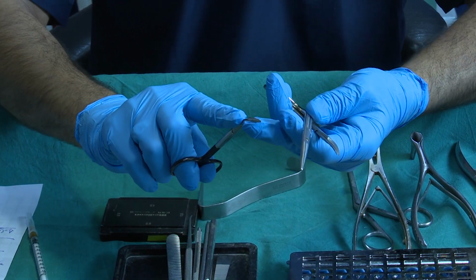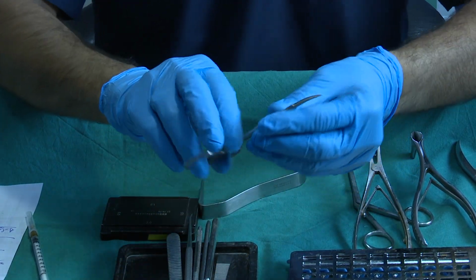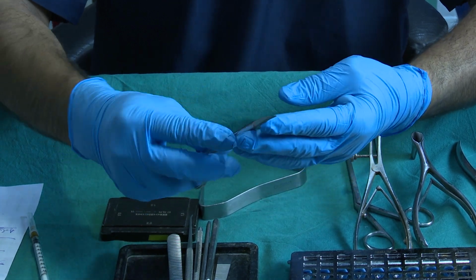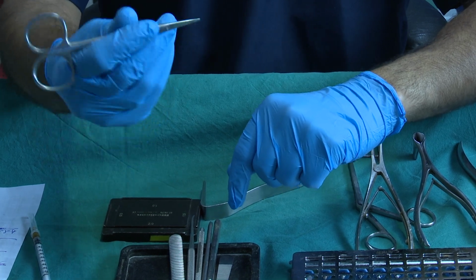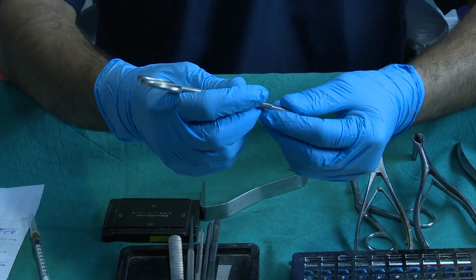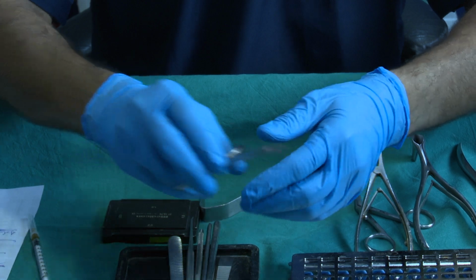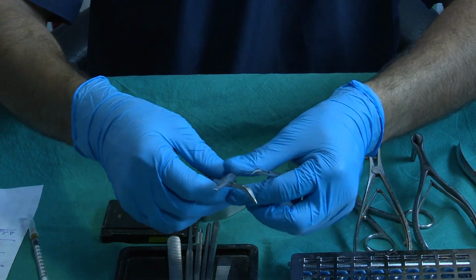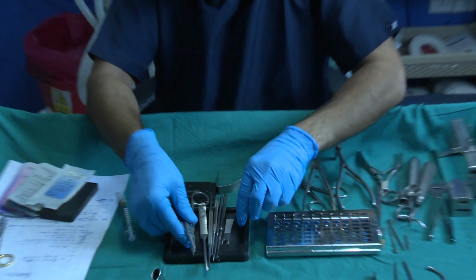When you dissect at an angle, you can use it. But I love this scissor, and I think you should have it. This is a good scissor. You can use it as a periosteum elevator, like many of my fellows do, in a pen holding position. You can use it as a periosteum elevator and as a cutting scissor, so it's a good scissor. I think you basically need these two or three scissors for lifting up the soft tissue envelope.